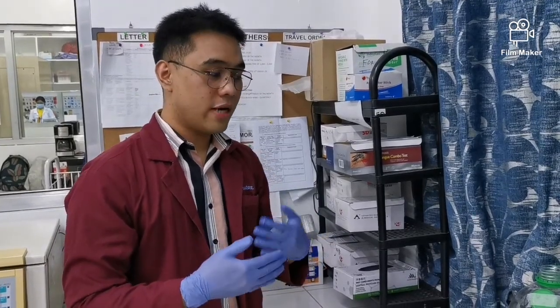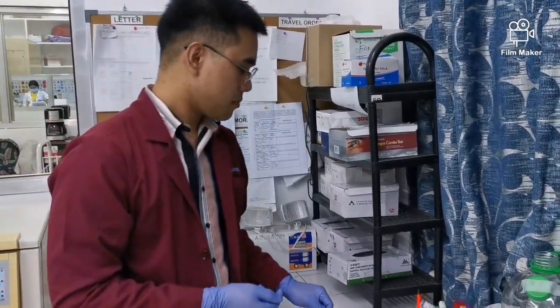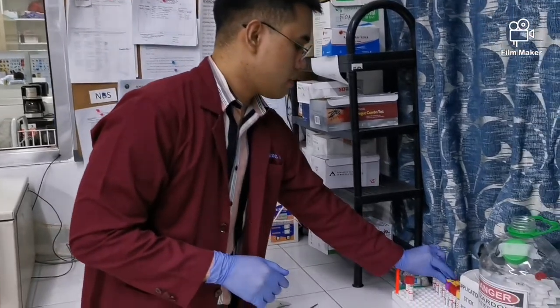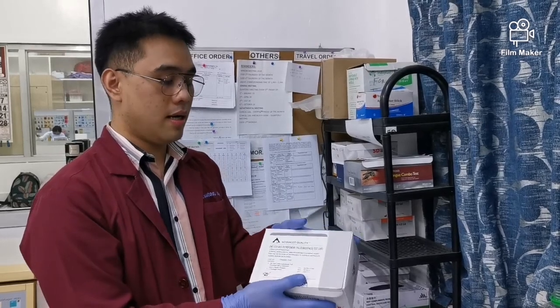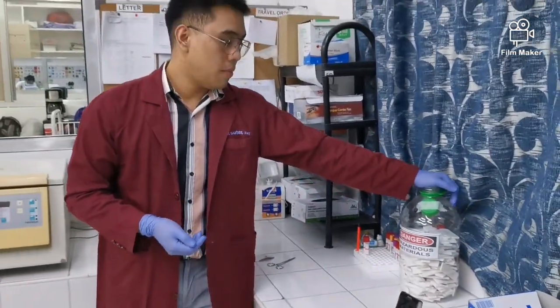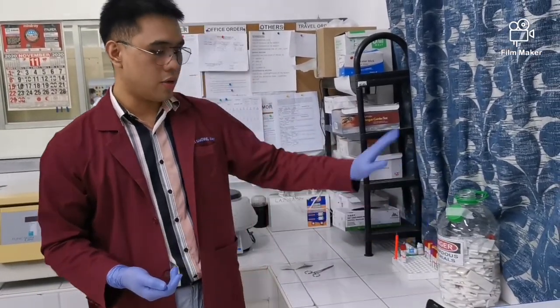Usually, we also perform here the erythrocyte sedimentation rate, but we are out of stock. But I will just show you another video for that. Okay? And the usual specimen for our serology is again serum. We can also use plasma, depending on the insert of the test kit. Okay, but usually we use serum. Of course, they are considered biohazard, potentially endangering our health, so we must put them in a separate container.